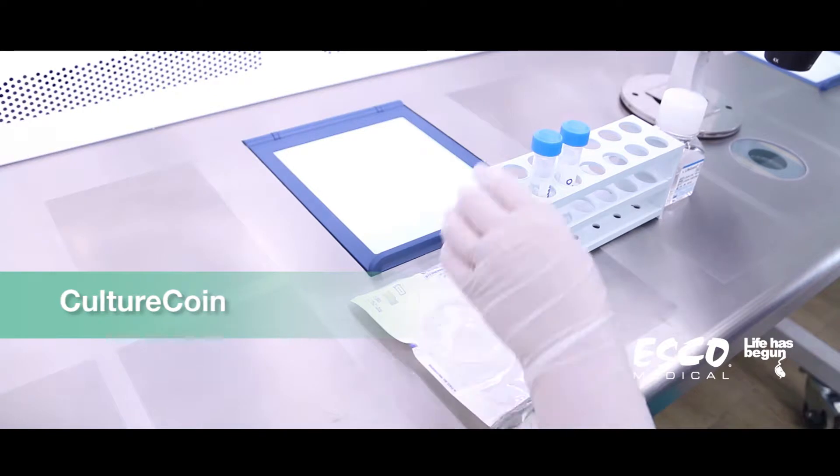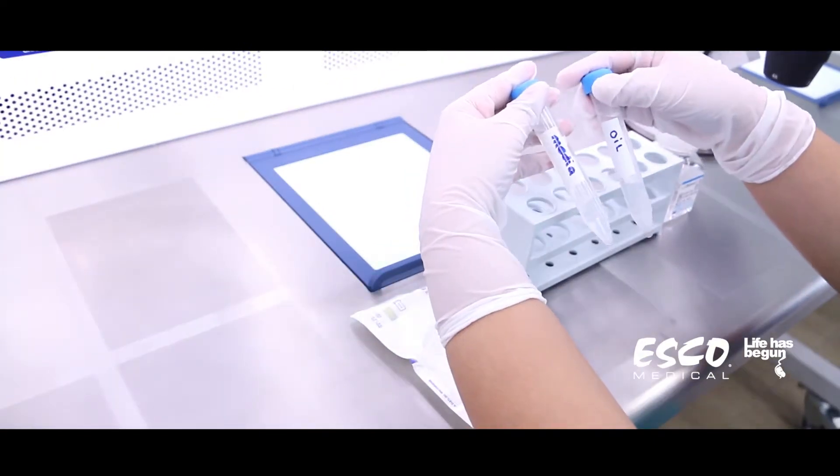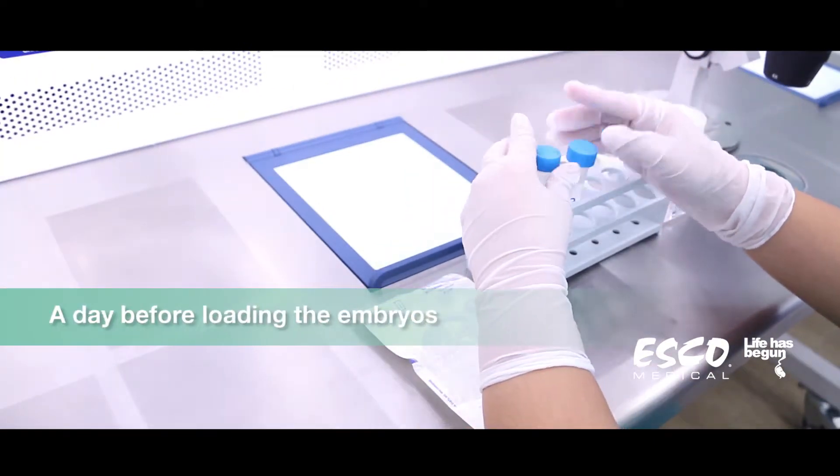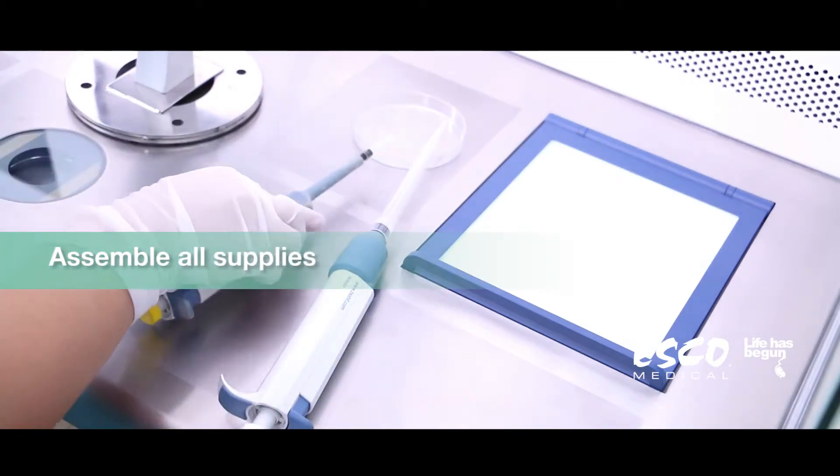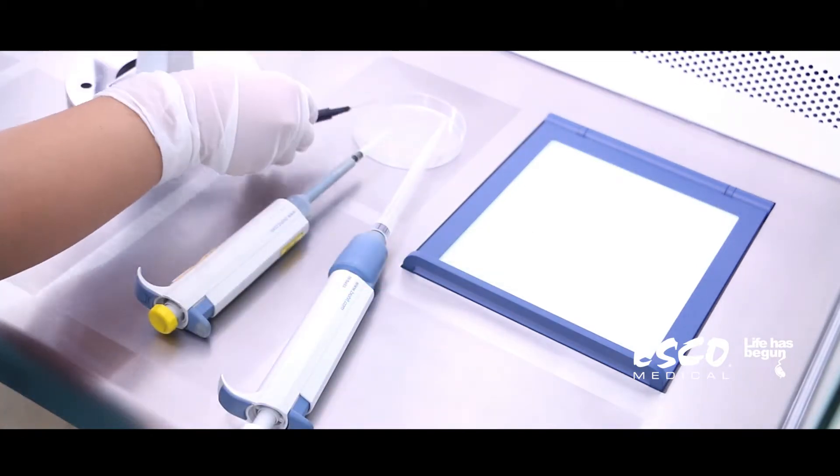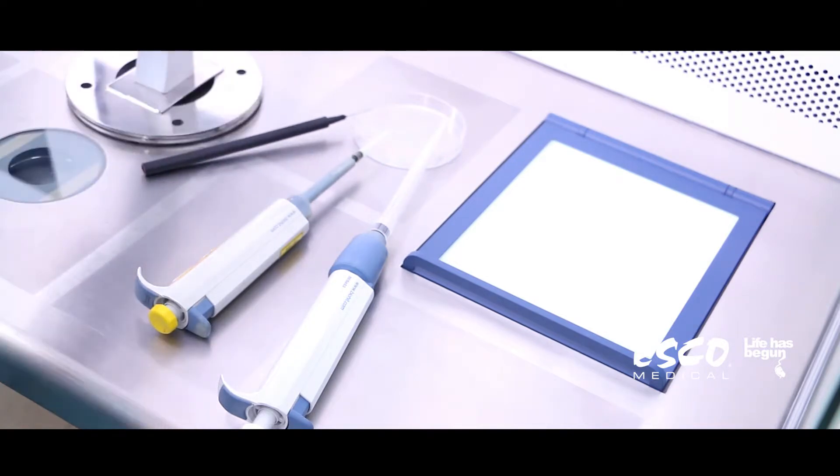Preparation of the culture coin, media and oil must be done a day before loading the embryos. Assemble all necessary supplies at the workstation prior to commencing so that preparation of culture coin will be seamless.